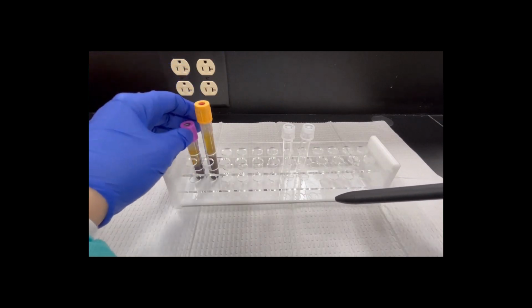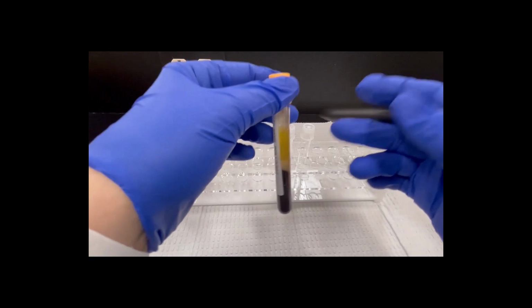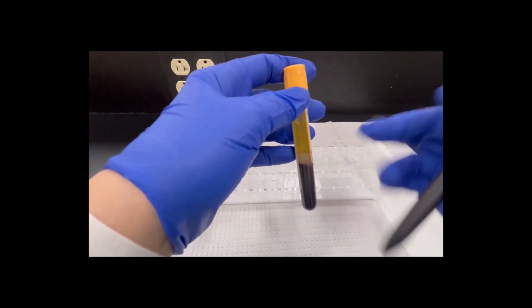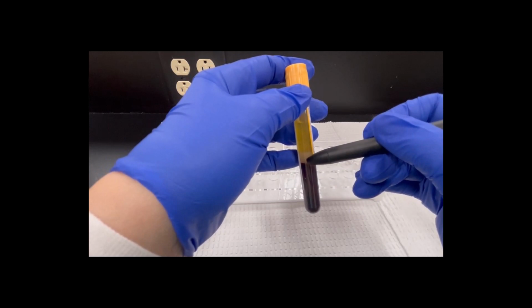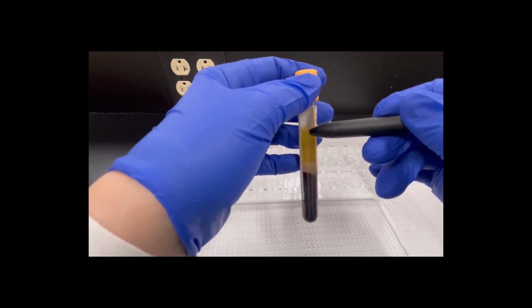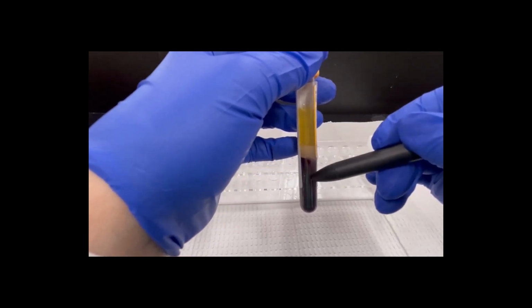So depending on the tubes we're doing, we got serum tubes and plasma tubes. So I'm going to go over this one first with you. This is a gold top SST, serum separator tube. When you spin it, this gel starts at the bottom, and it goes up on top of the cells. And so I get serum on the top because you let this tube clot before you spin it.